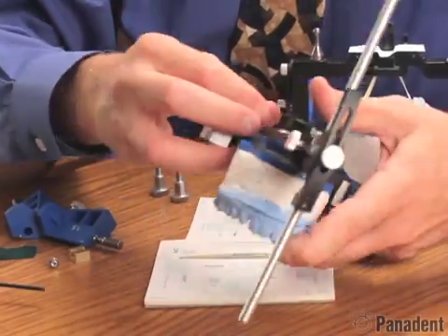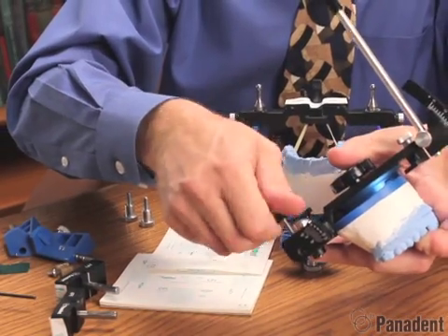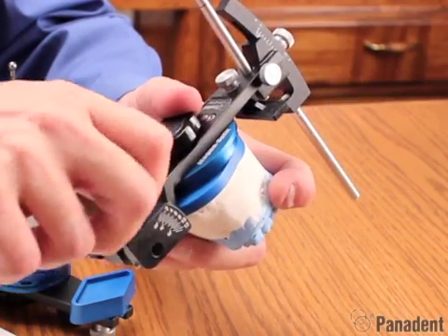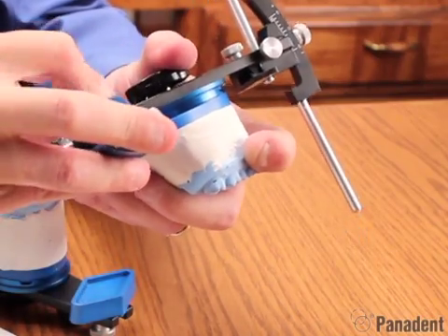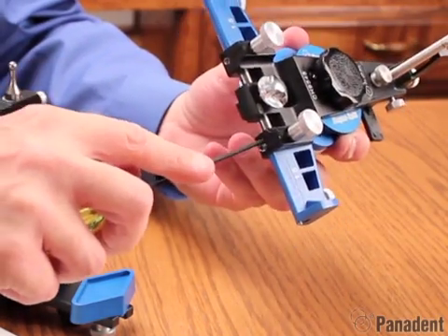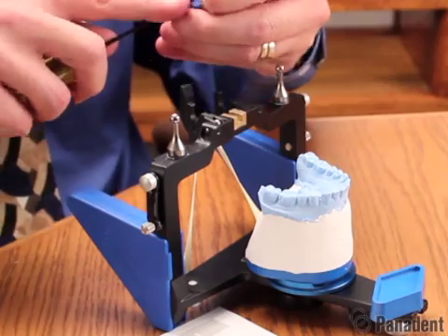So now that we've marked the graphs, we can go ahead and remove our graph supports from the upper frame and remove the API screws. We can then replace the analog thumb screws and then replace the motion analogs and lock that in place using the lock screws in the back. We can then remove the horizontal graph support and replace our centric channel using the button screw and the hex wrench.